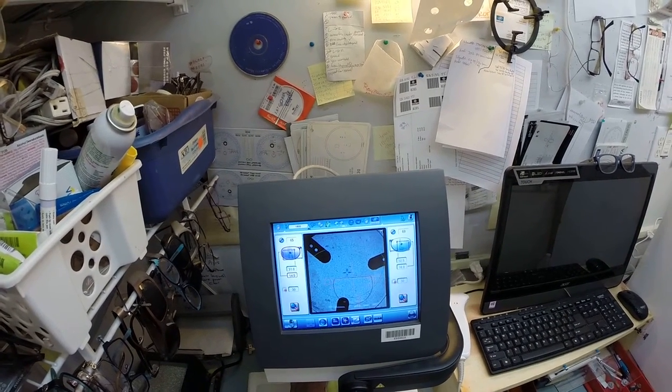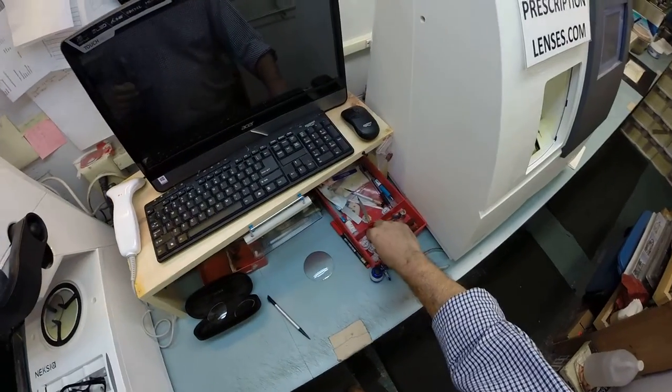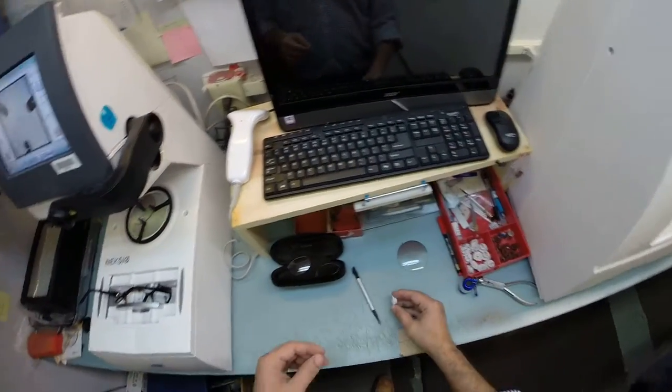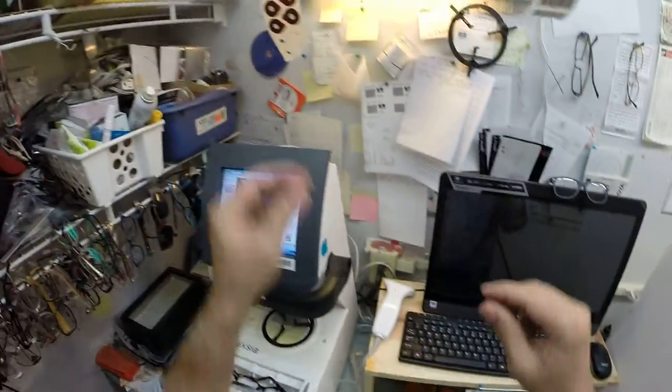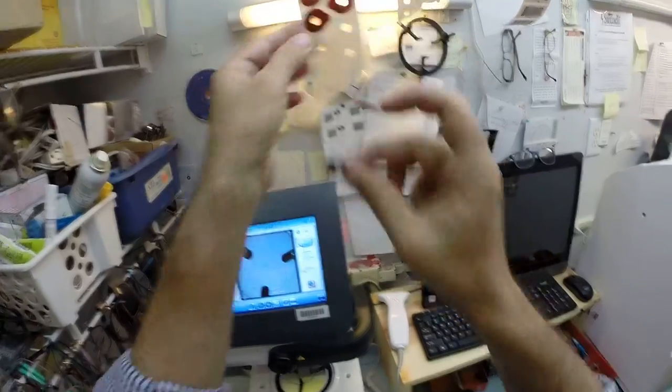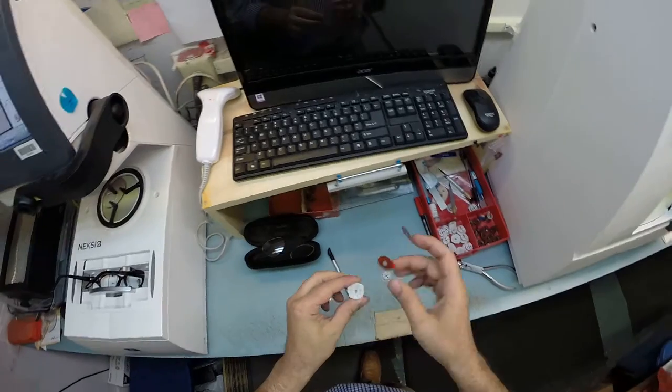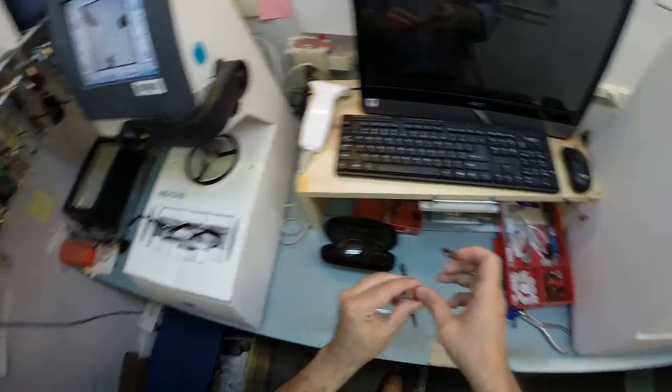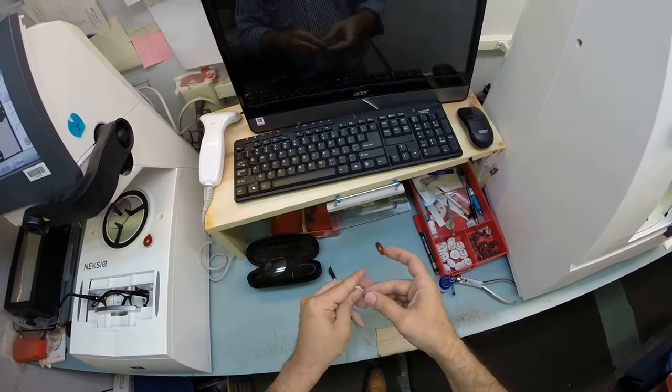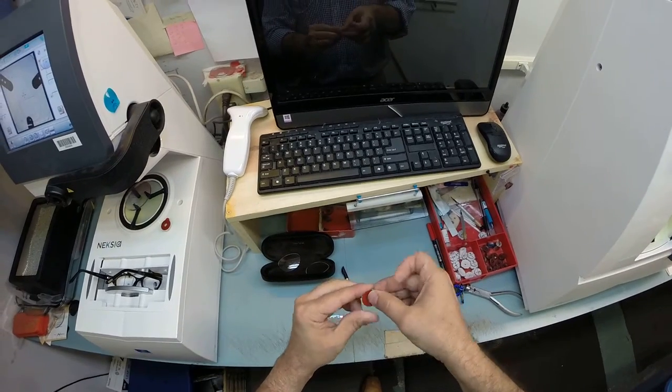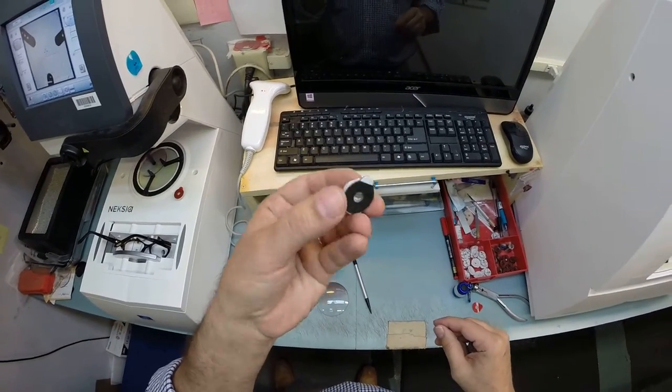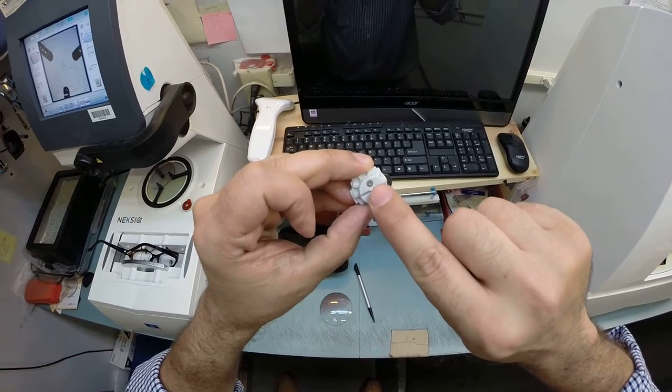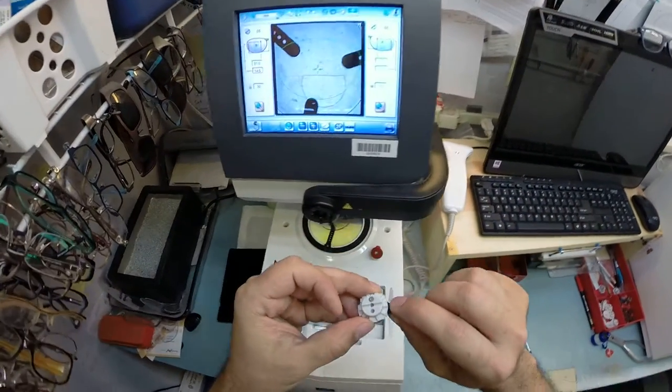This is a block, as I like to call it, Jenny from the block. I need to attach this to your lens while it is cutting, so I need a double-sided adhesive sticker. The black side is the sticky side. I'm going to stick that on the first block, get the second block ready, pull the paper away to make the black side sticky.